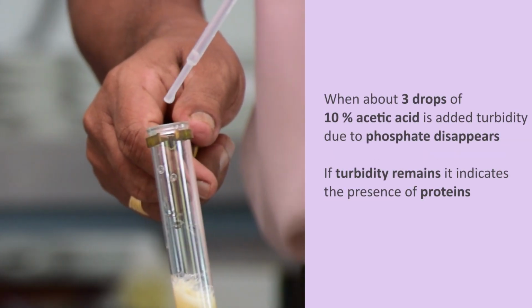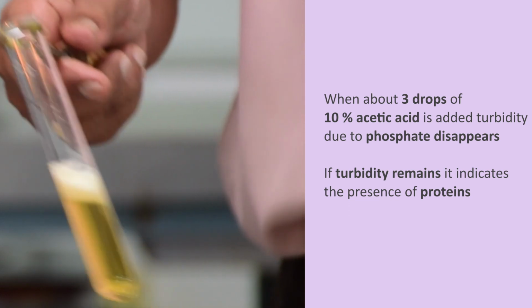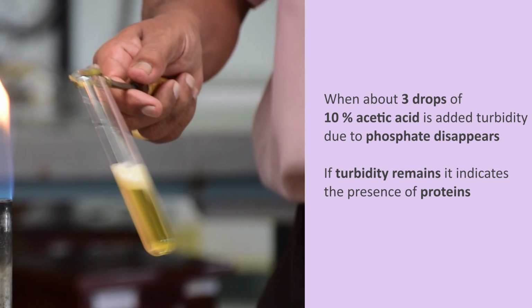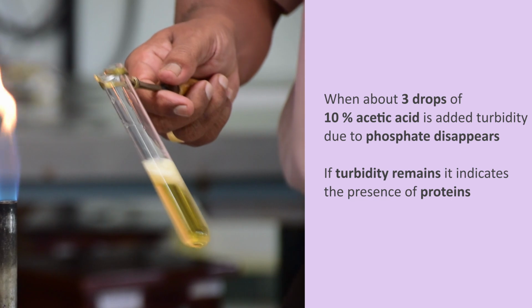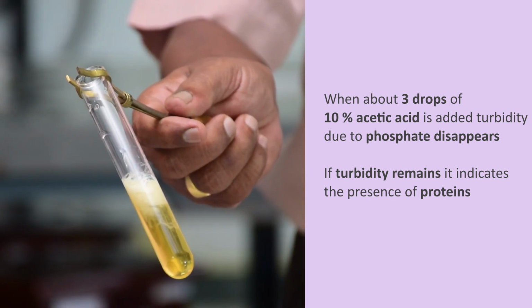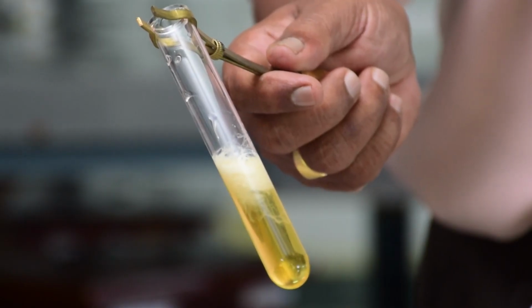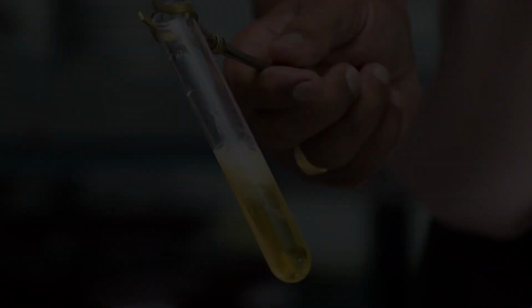When about 3 drops of 10% acetic acid is added, turbidity due to phosphate disappears. If turbidity remains, it indicates the presence of proteins. You can appreciate that the sample is positive for proteins.